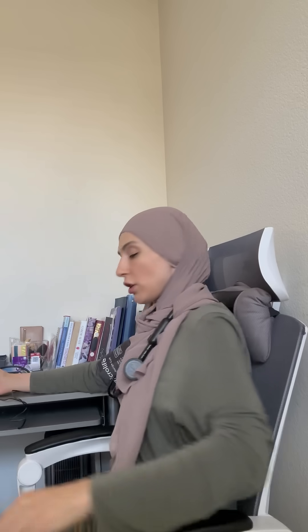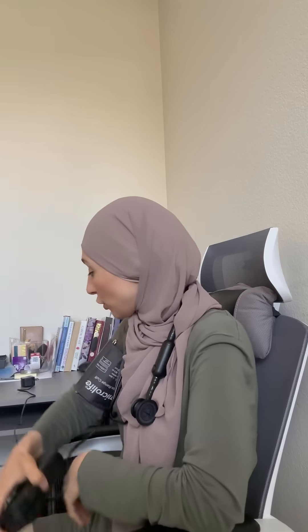The cuff should be the correct size, measured while at heart level and completely rested. It should be measured at specific times — the same time every day, twice a day, in the morning and at night.